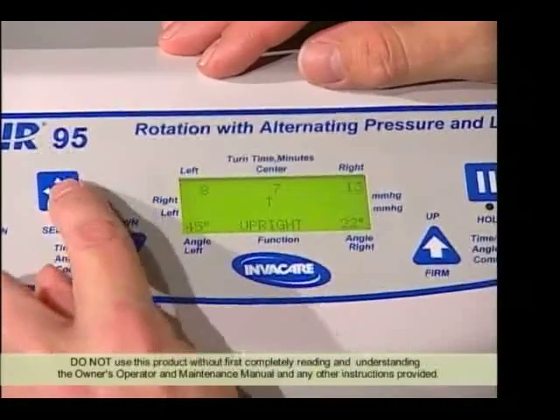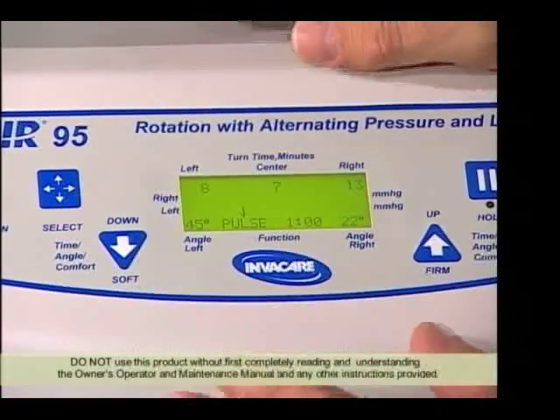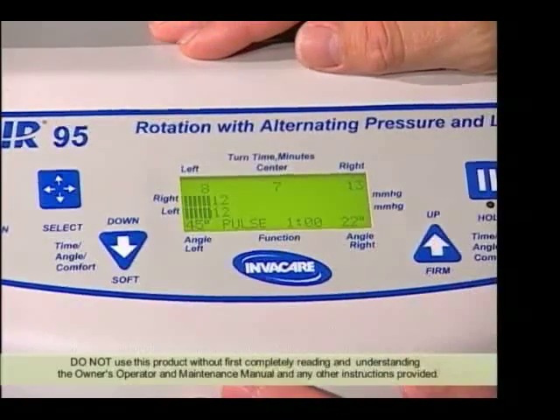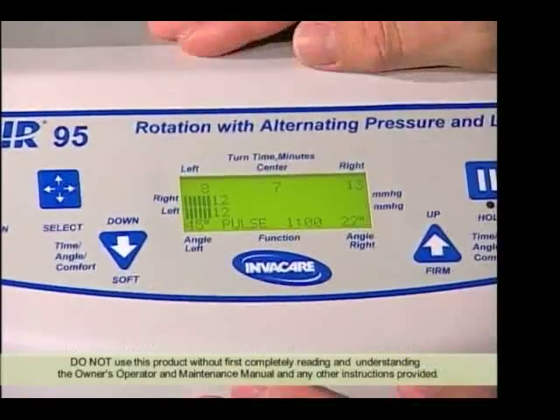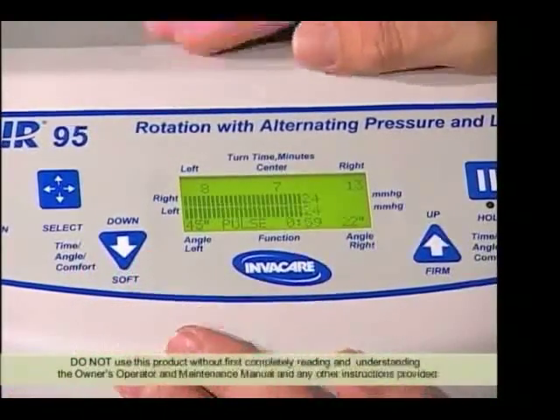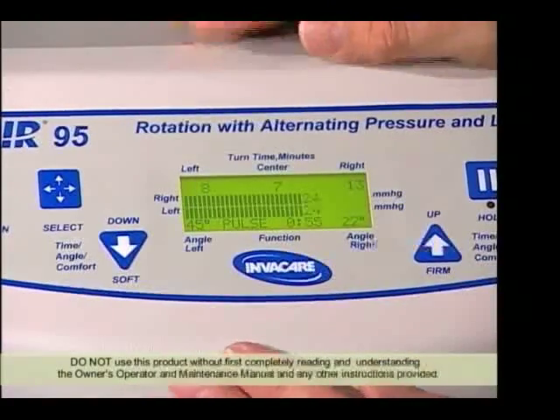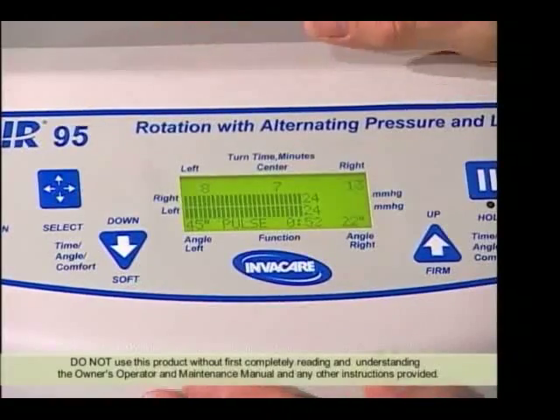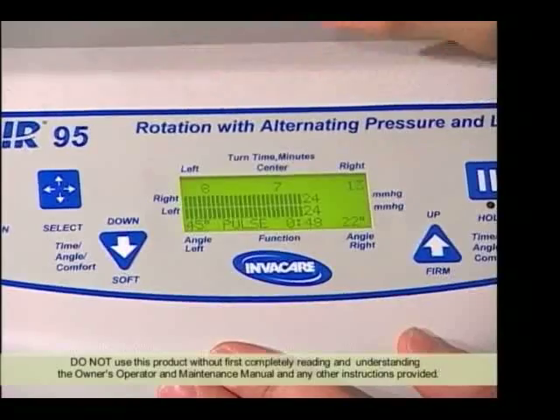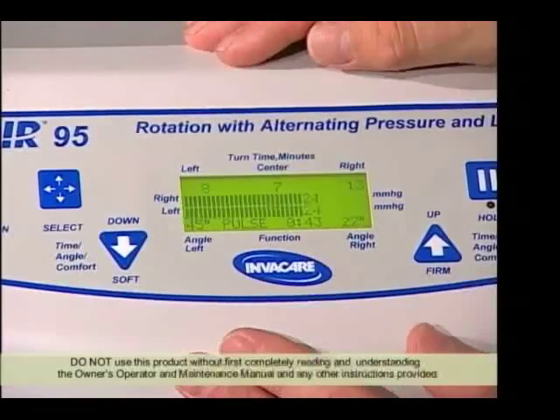Another function is the pulse function. As the patient is laying flat on the mattress, the pulse will drop the pressure reading that you have set in half. The patient will submerse into the mattress and then be brought back up again — a little additional therapy for the patient. So if we have this set to 24 millimeters of mercury, the pulse feature will drop it in half down to 12. The patient will submerse into the mattress, dwell there for a few seconds, and then be brought back up. You can set the time from one minute to 99 minutes in duration.